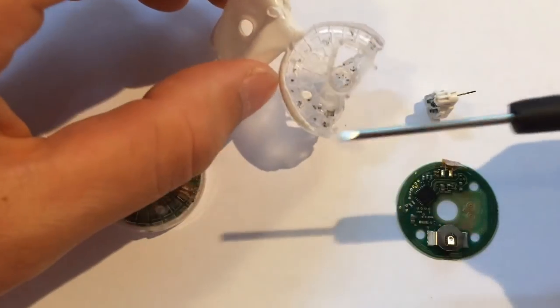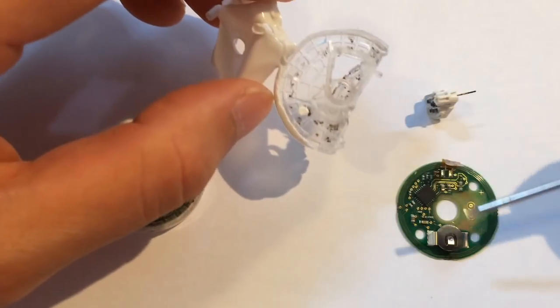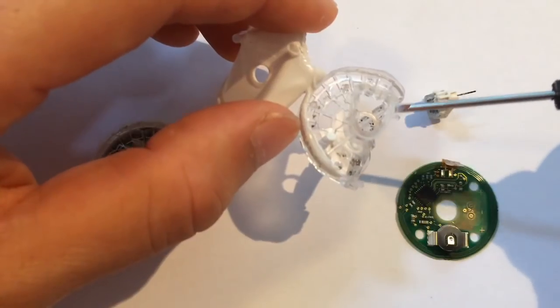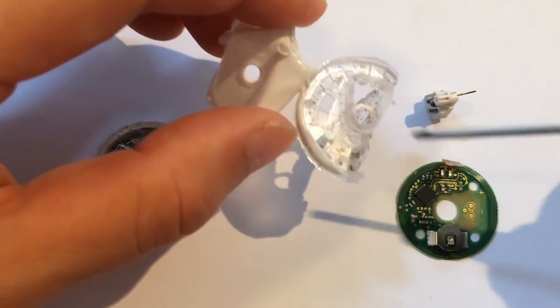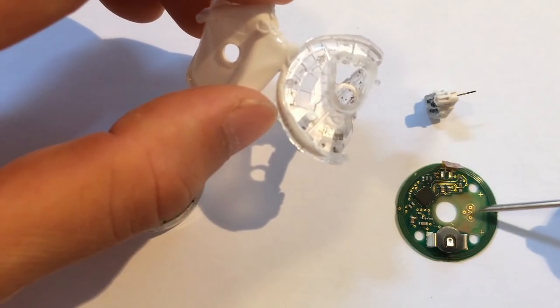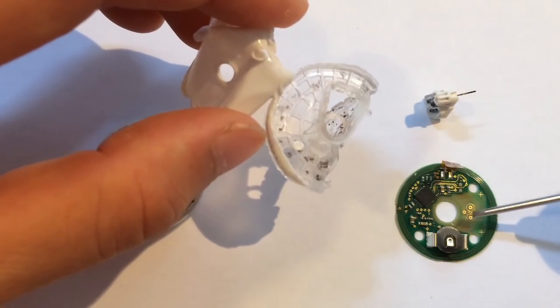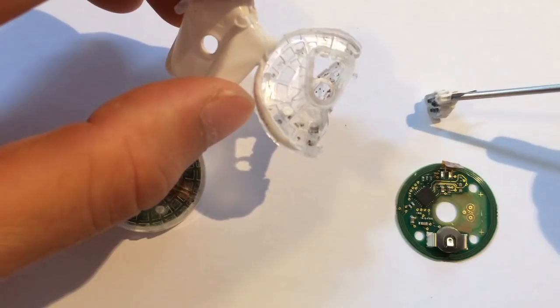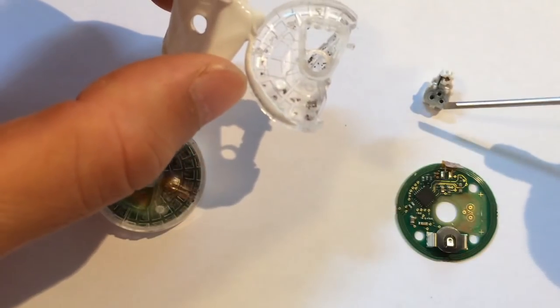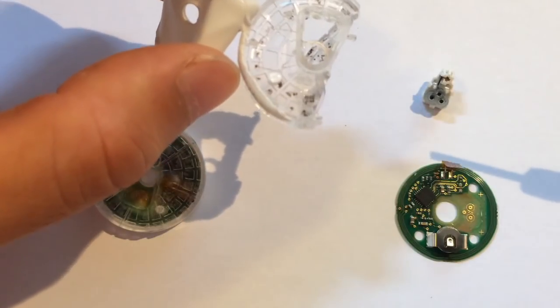The whole case is completely waterproof. As you can see here, there's a ring that then attaches to the board. It's melted to the board in a waterproof manner that goes around here and only exposes the little pad, three pads here, which then connect when you put the inserts together. These then touch against the pads to make a connection to the electrode.